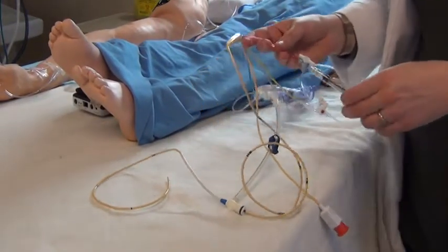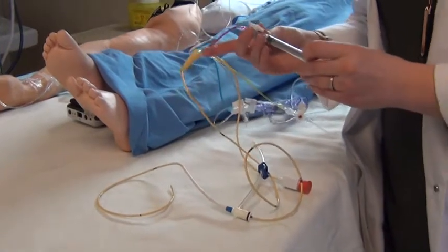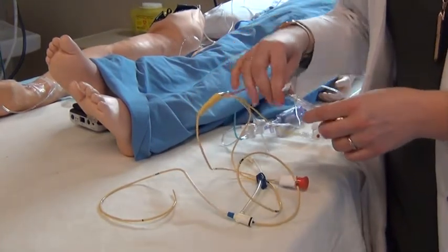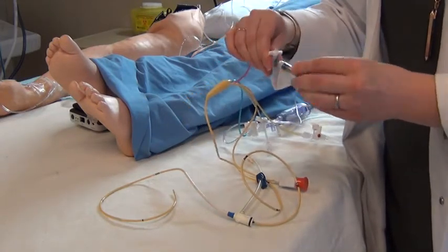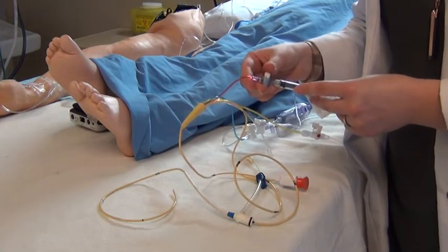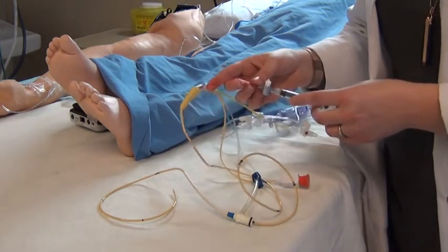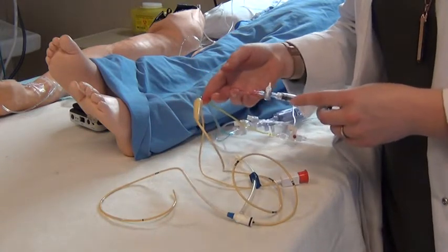An important safety measure in nursing care: after inflating the balloon, you must ensure it is completely deflated and lock the catheter so the balloon cannot accidentally re-inflate. Remove all air from the syringe when you reconnect. You would not want the balloon to remain open, as this would cause necrosis to the pulmonary artery — the artery could rupture, which is essentially fatal.